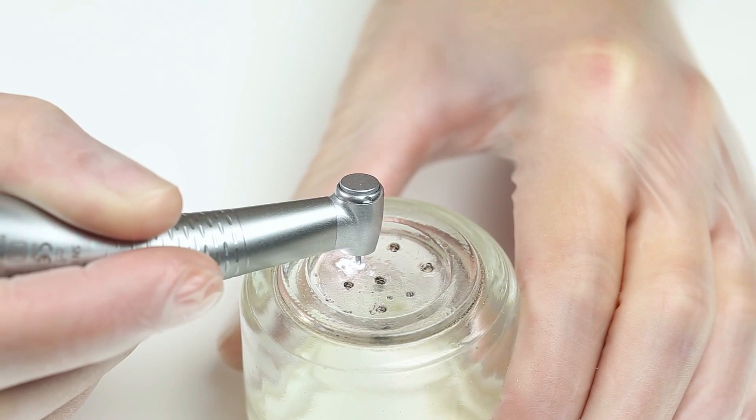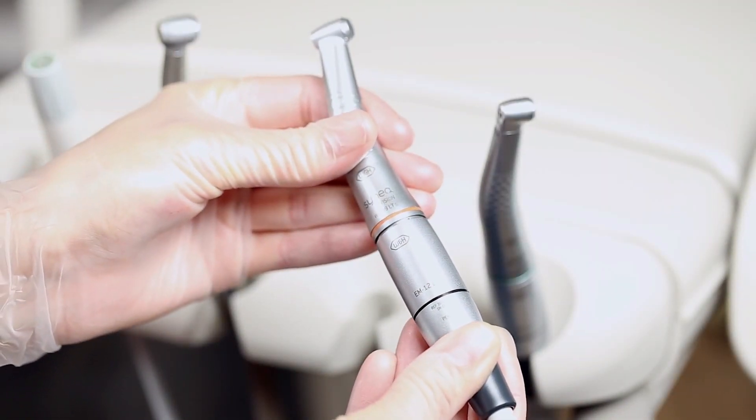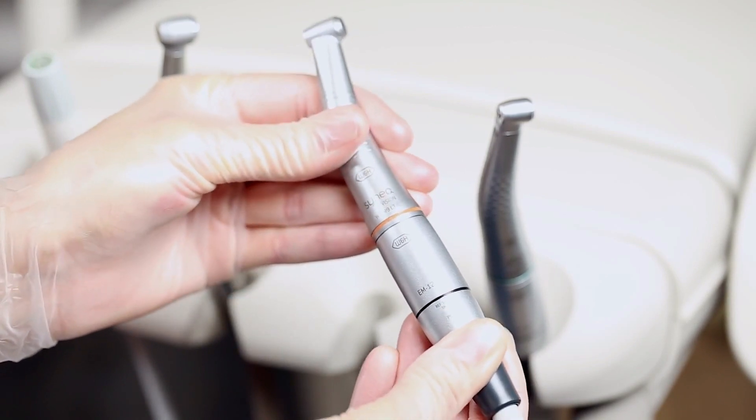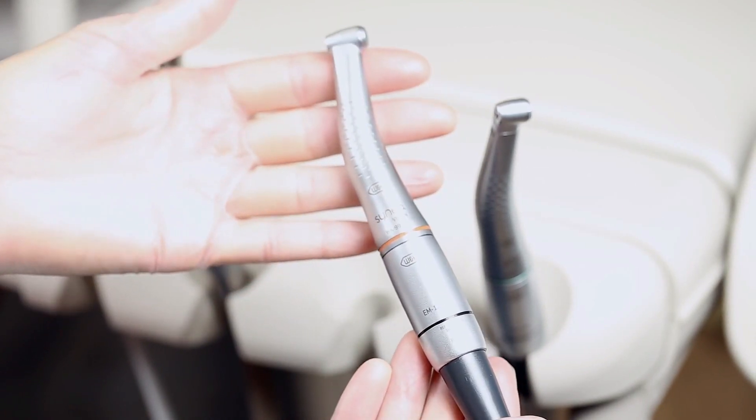Hi! Welcome to another Biomedical Engineers TV video. In this video, we will look into dental drills, which are one of the most important instruments used by a dentist.